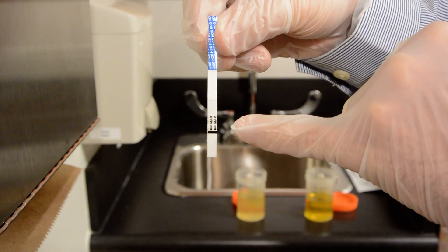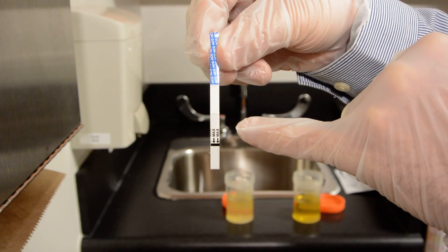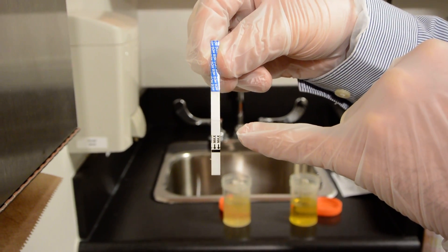As you can see there is a line, a black line with written max next to it. That means that you should not put the stick deeper into the urine than the line.